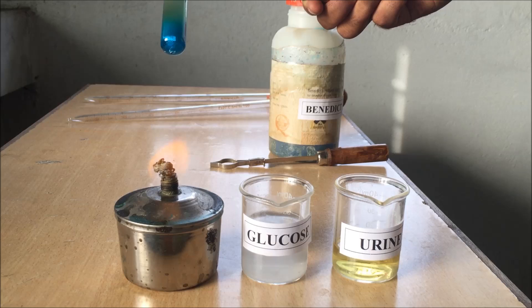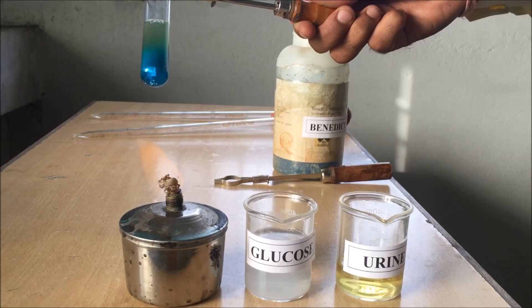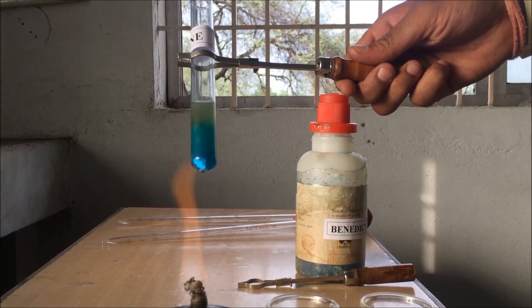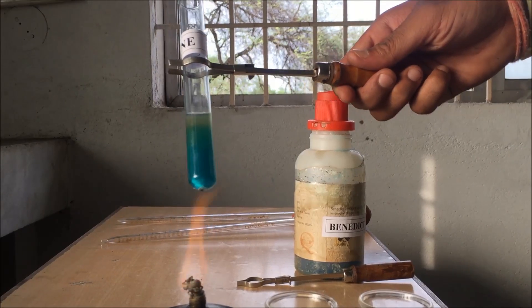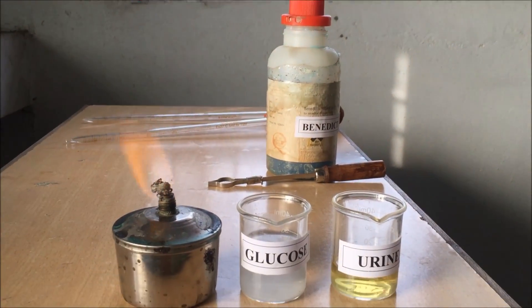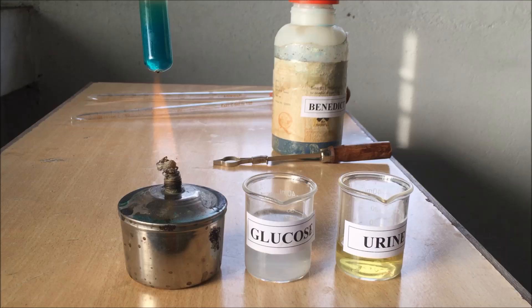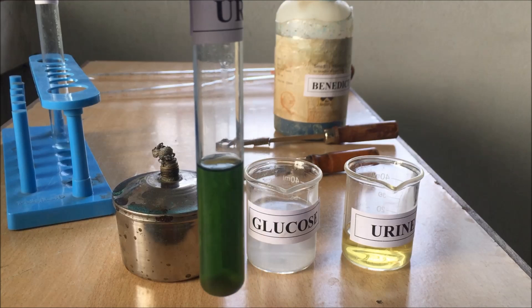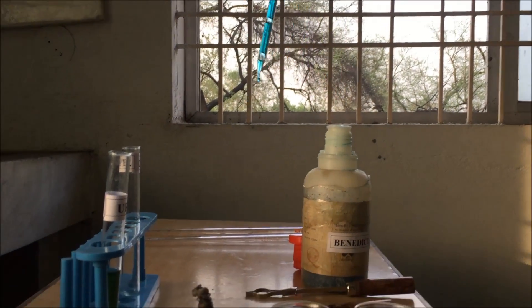We will heat the test tube for 2 to 3 minutes and you can easily observe the change in color. The color of the solution was blue and now it is slightly turning into green. This color change shows the amount of sugar present in the normal urine sample we collected just before. We will then allow it to cool for 5 minutes, and once the solution has cooled, we will allow it to stand properly.